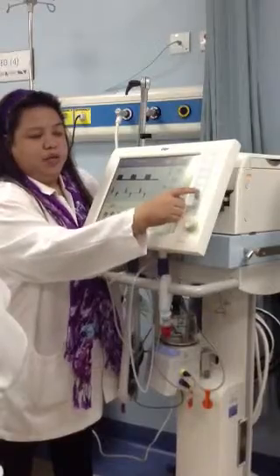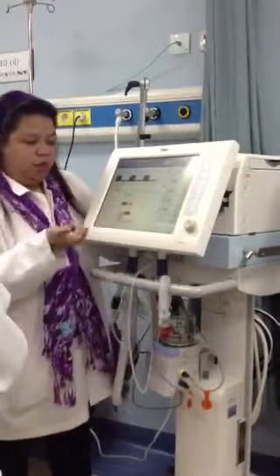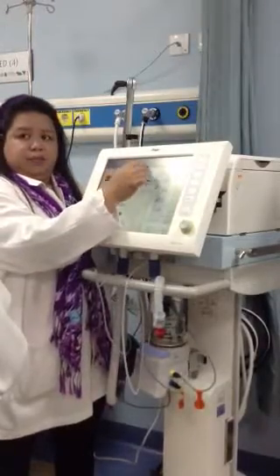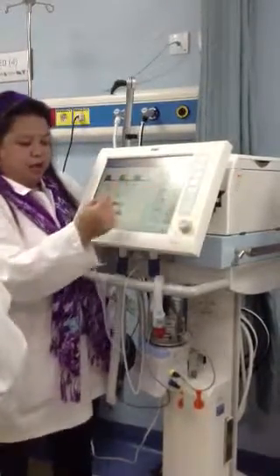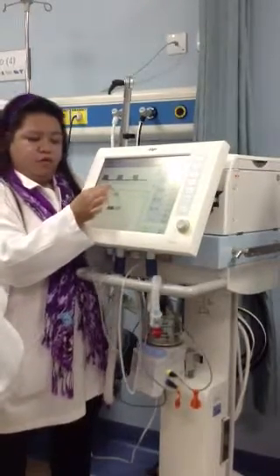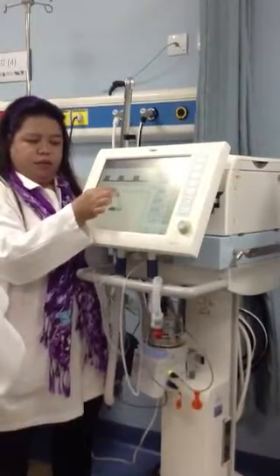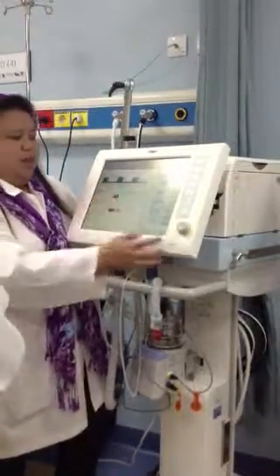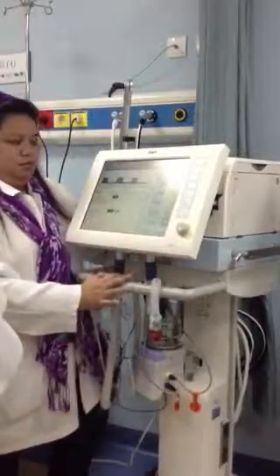This is where you check your sensors, if it is working or not. If there is an alarm, NeoFlow sensor, calibrate. So press your alarm sensor and choose if it's flow, oxygen, and if you connect the NeoFlow sensor, one parameter will come here, NeoFlow. So just start, press, and calibrate.